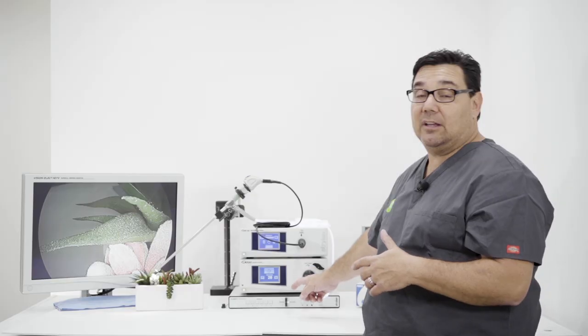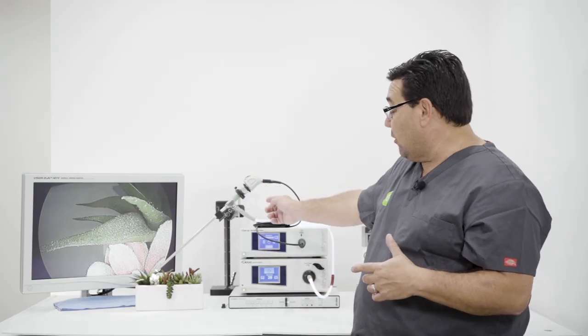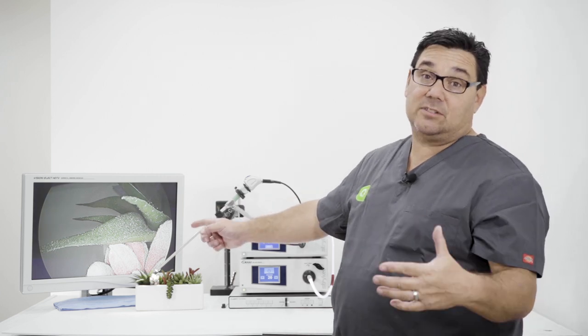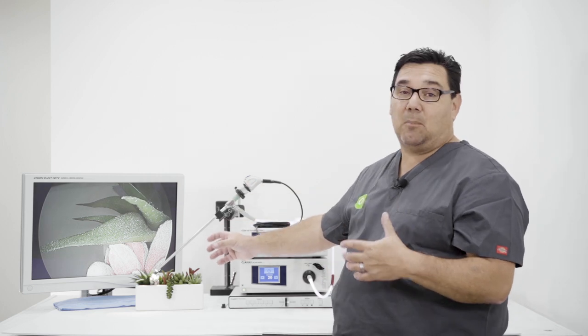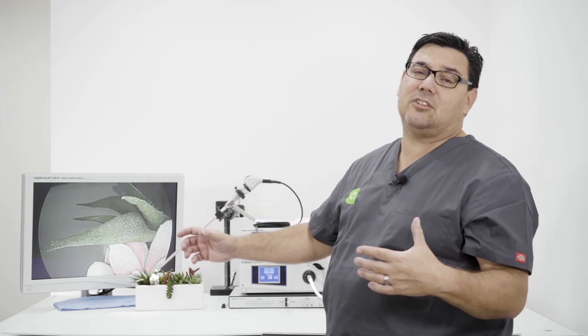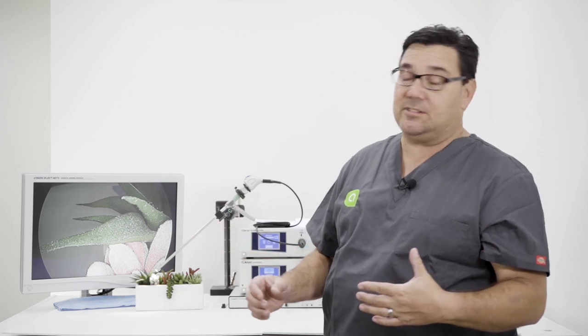And we have the Clarity System on the bottom, as well as the 1288 camera head, a AIM scope, which is Stryker's latest and greatest, and then we also use this model design to show you the enhancement capabilities of the Clarity System.